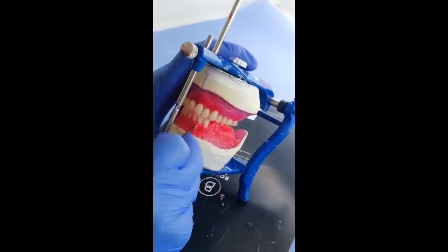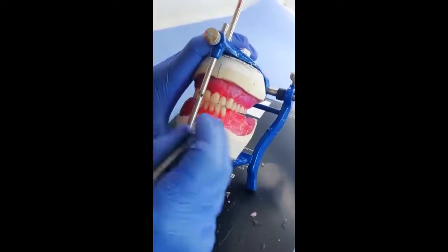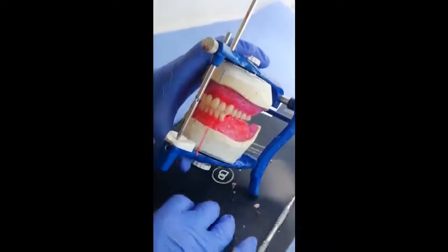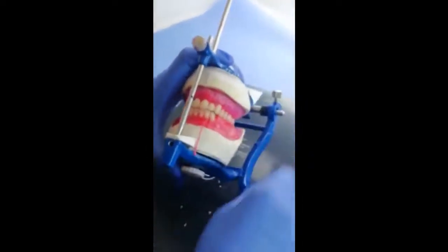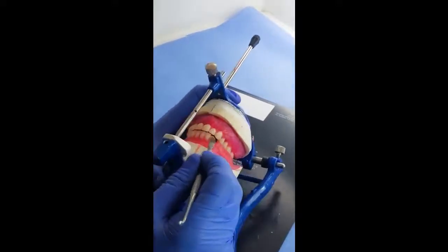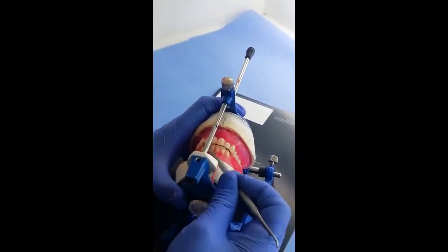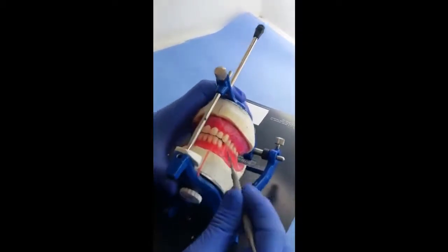Now we continue cleaning the wax surface in preparation for the waxing up or festooning after we finish the sitting of the teeth. Now we check our sitting for the lower anteriors, and you can notice here what I already mentioned and emphasized: an equidistance overjet. The amount of overjet must be all around the arch the same amount.